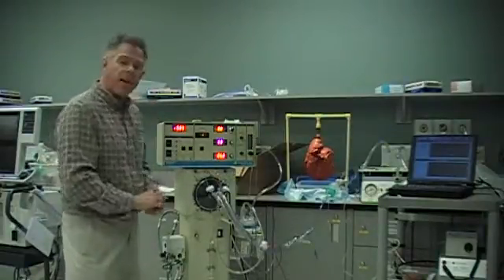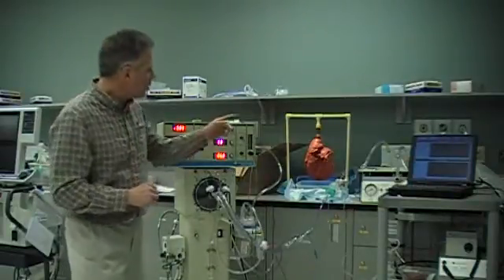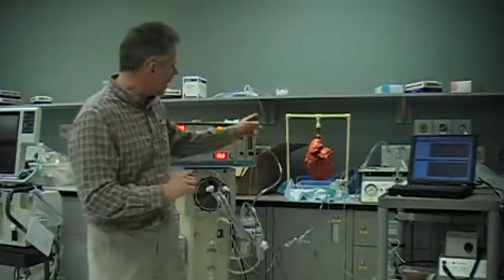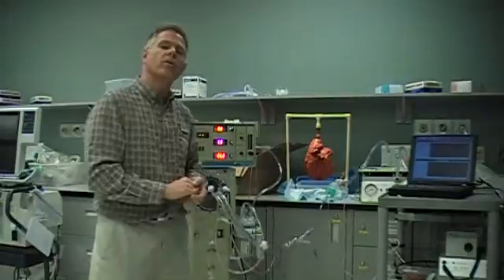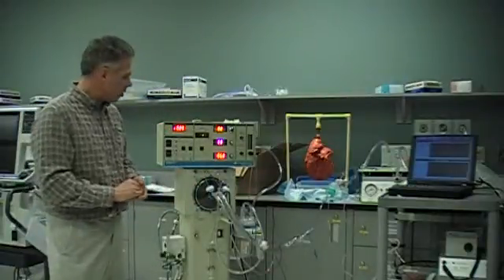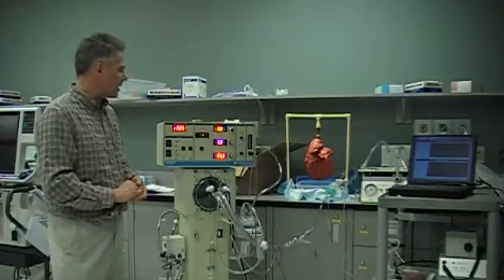We're going to fire this ventilator up and I'll try to show you some of the interrelationships. We're going to actually be oscillating a pig lung today, and I've got our other computer set up to show you the differences in waveforms. I'll take you through our basic setup of a high frequency oscillator.